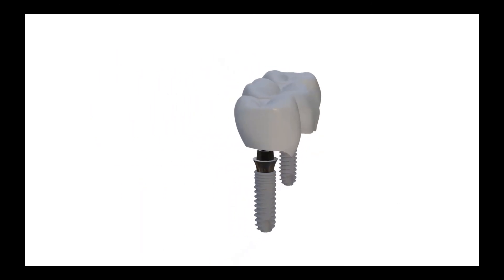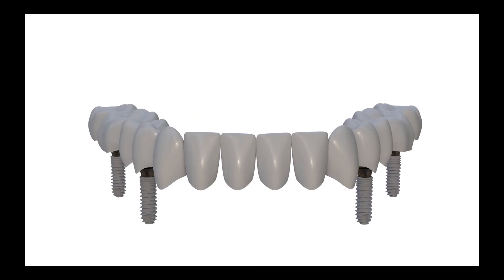On the other hand, in the second group of non-straightly fabricated or curved bridges, we may be more comfortable since no tipping movement exists, and thus multi-units are the best choice.